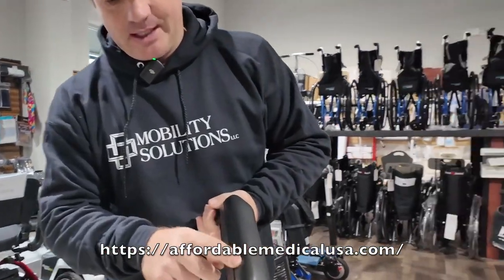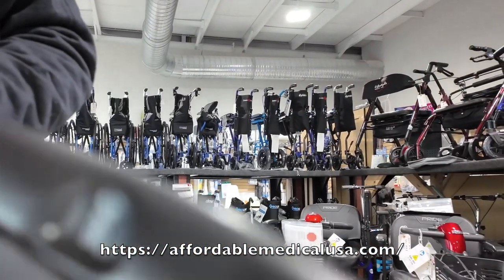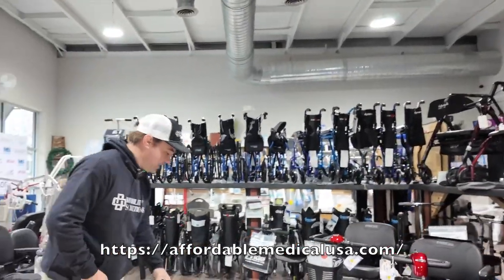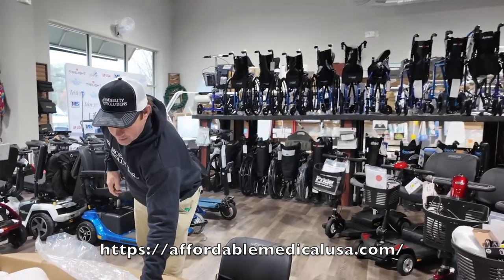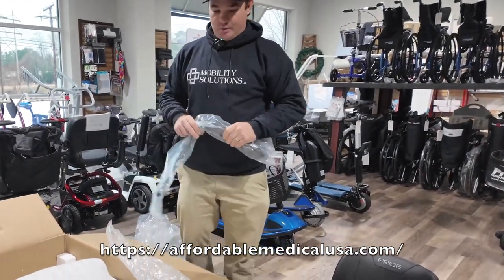That's the first time I've really seen this coming in from shipping damage. The box looks fine, so if you get that, take a picture of it and send it to me — I'll get that taken care of. Very rarely do you see problems with these.